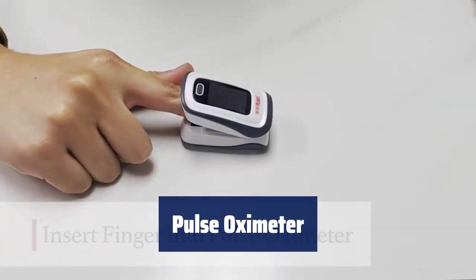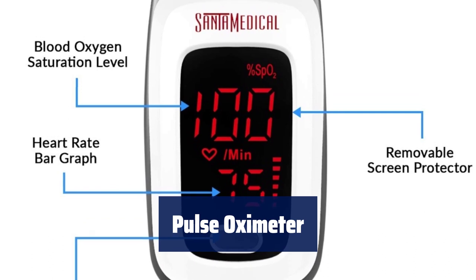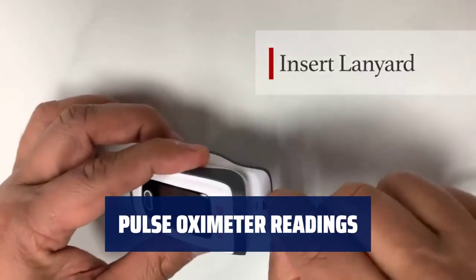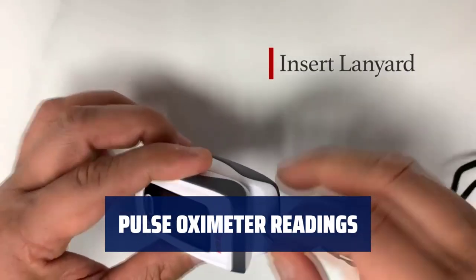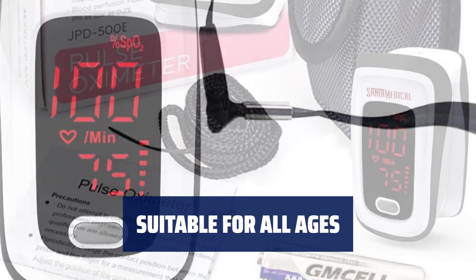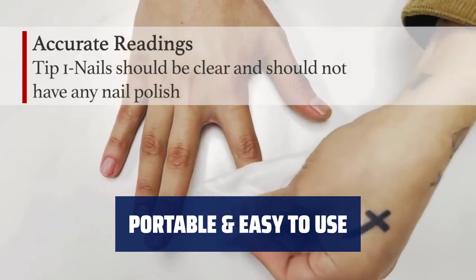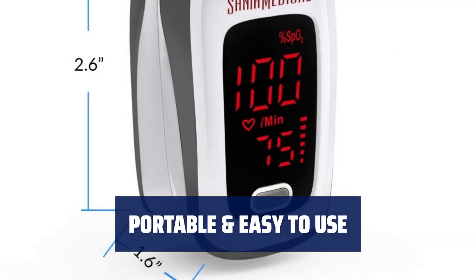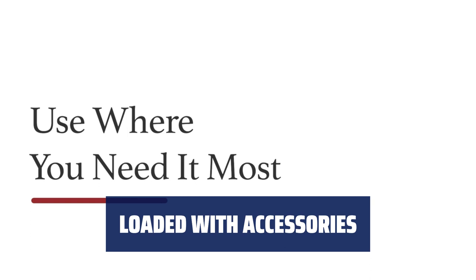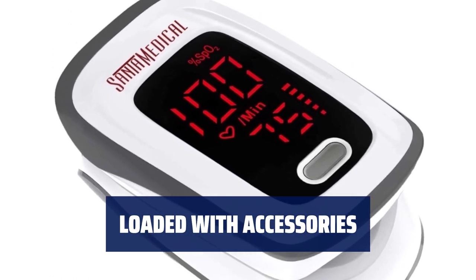Number 3. Get clinically tested and proven consistent results with this device. Receive blood oxygen levels, pulse rate, and pulse strength results in just 8-10 seconds on a large digital LED display. Keep track of your oxygen levels, pulse rate, and pulse strength with a simple bar graph display. The smart design fits a range of finger sizes with a latex-free silicone chamber, making it comfortable for all ages to use. This lightweight and compact device is easy to handle and carry, and is ideal for sports and aviation use. Included are two AAA batteries, a protective case, neck/wrist cord, user manual, and a one-year manufacturer warranty.